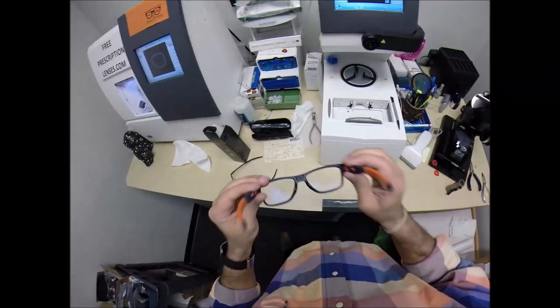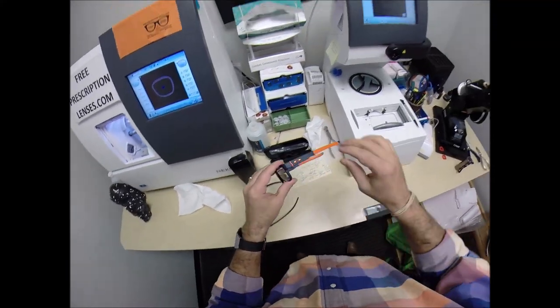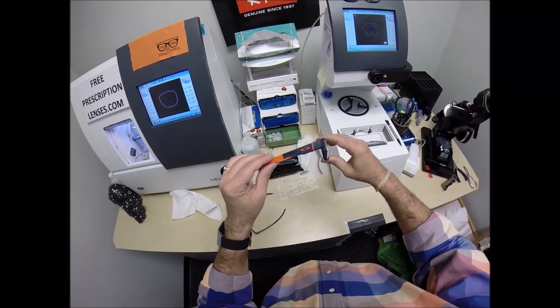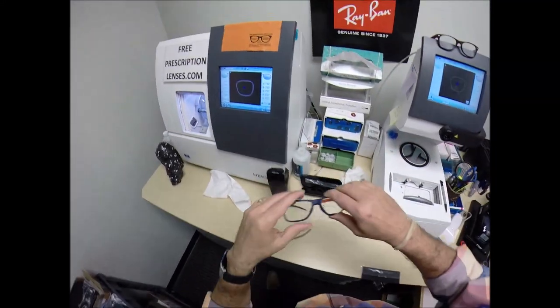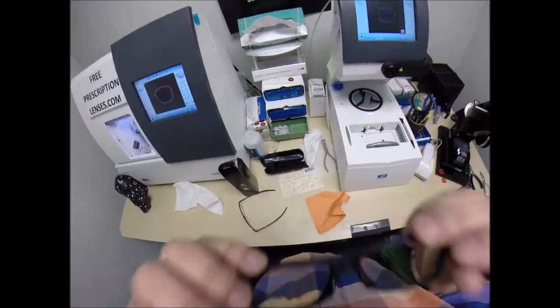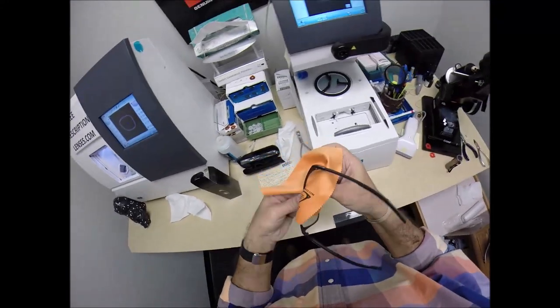And see, I'm part of that 80%, but it's some miraculous thing about my Oakley. And of course, I'm wearing the 8132 in the color, oh, what color is it? It's 03 Universal Blue, the blue-orange. To go with my blue-orange shirt. You've got to love that. My orange cleaning cloth. In fact, let me go ahead and, oh, that's, hang on. That's mine. Let me put mine back on so I can see what I'm doing. I thought I was cleaning your lenses. Let me clean your lenses off before I turn them dark for you.